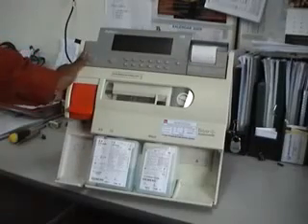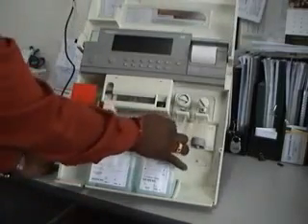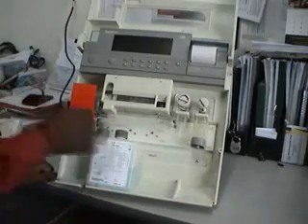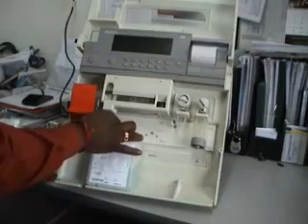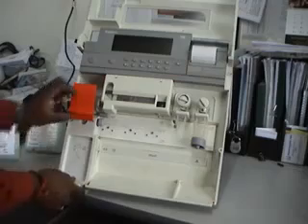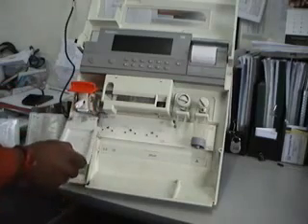Now I am going to explain how to remove the solenoid valve and how to clean it. The first step is to remove the wash bottle, then the buffer bottle, then we have a housing kit here — just remove it like this.